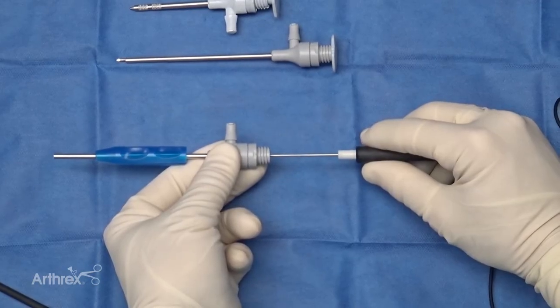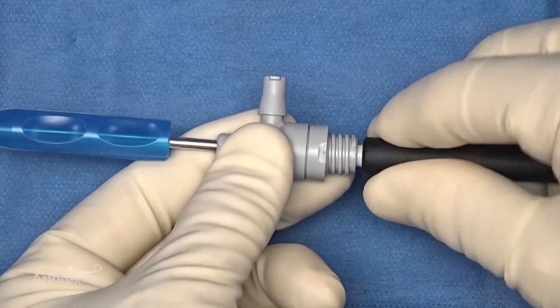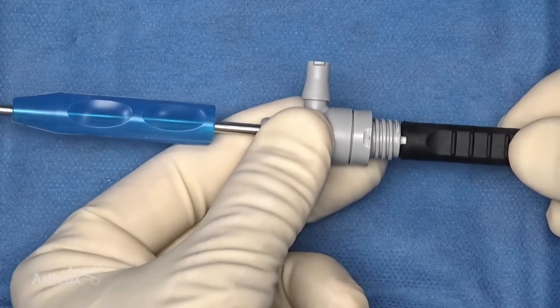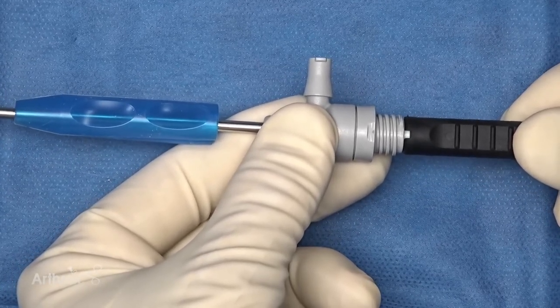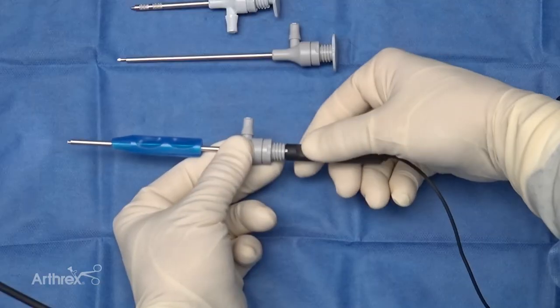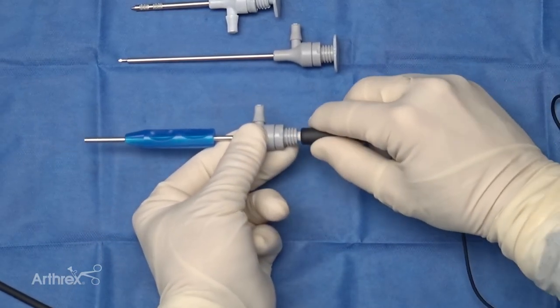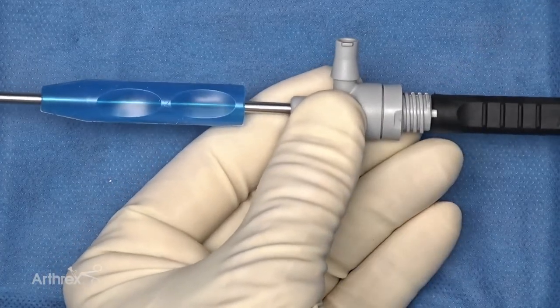One of the biggest advantages is how the handle will now click into place. As you place it in, the surgeon can engage with a small turn and it's locked — it no longer comes apart. In our previous model, there was no lock-in device, so it could easily piston during a case. With the new click-in device, the device goes in, a small turn, and it locks into place, giving the surgeon ultimate control.